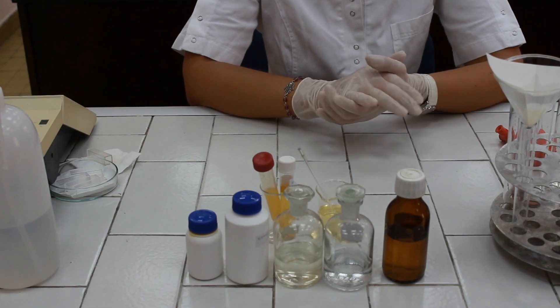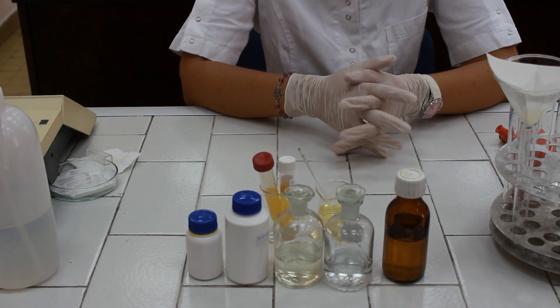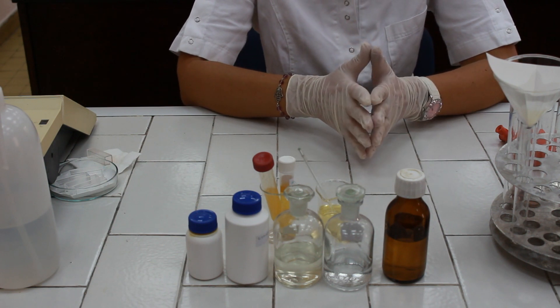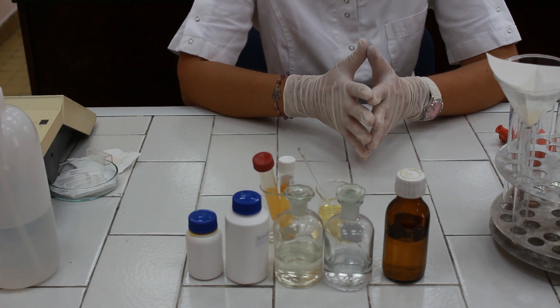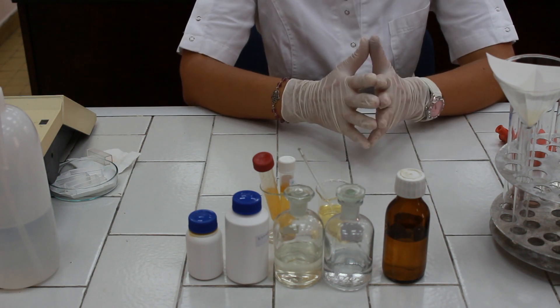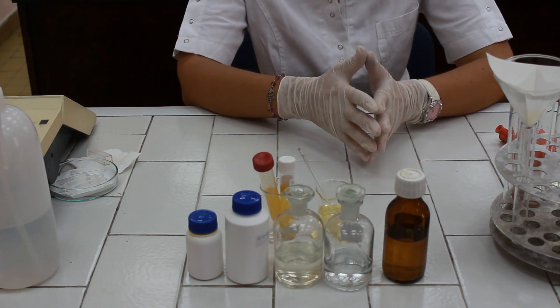In case of positive reaction, green fluorescence should appear. But if we are using a fresh urine sample, urobilin is not normally present, so it is unlikely that we will be able to notice the green fluorescence right now. But we can make a resume of the previous reactions.